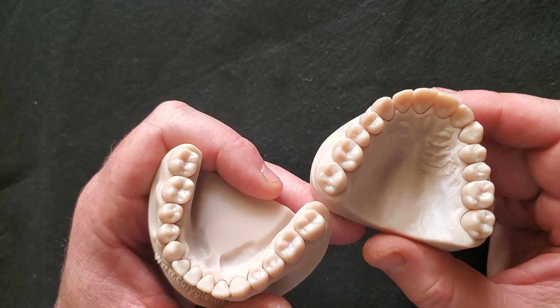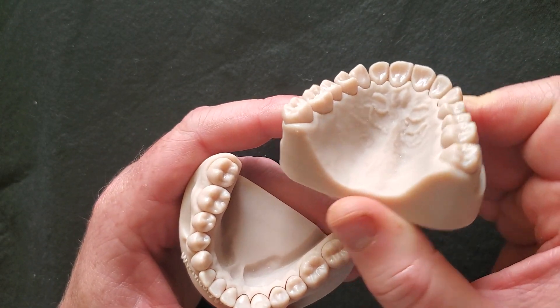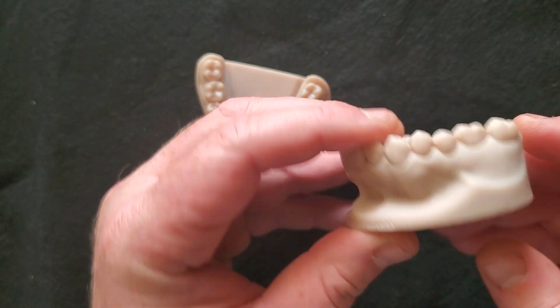As you can see, these are all virgin with great anatomy on them — just like the anatomy of the soft tissue that you would expect in a mouth. And if you needed to prep these, you could do so.